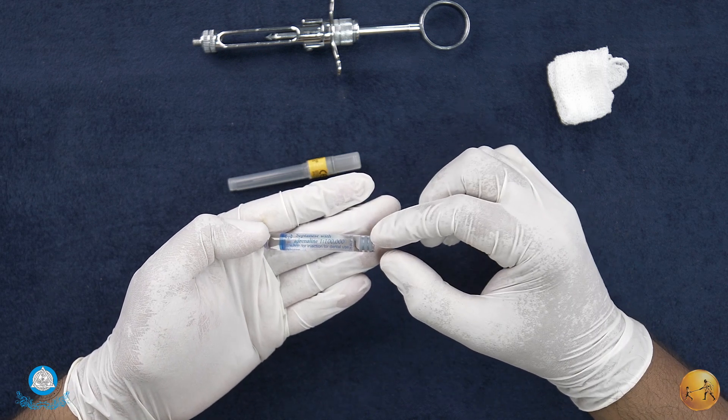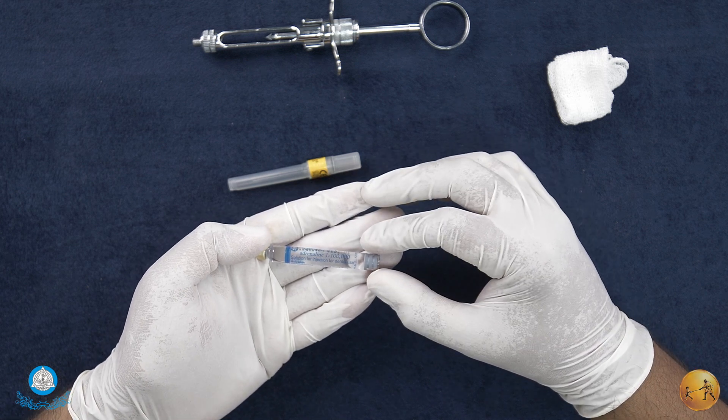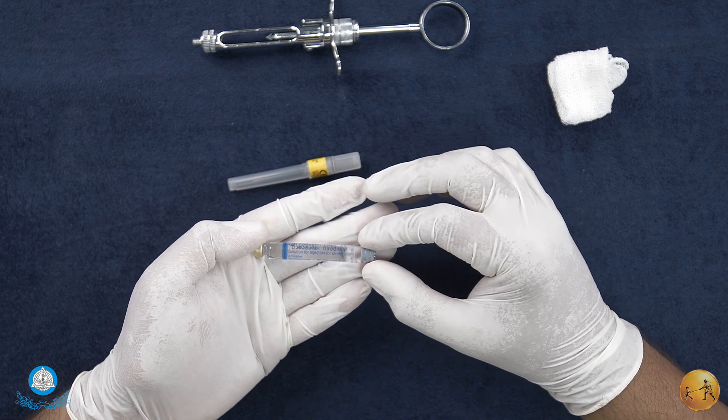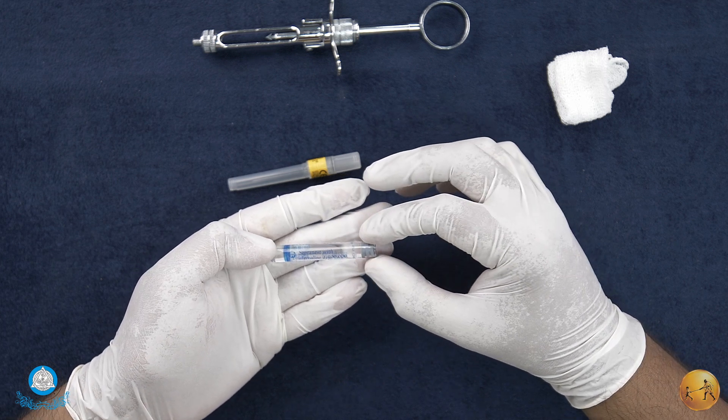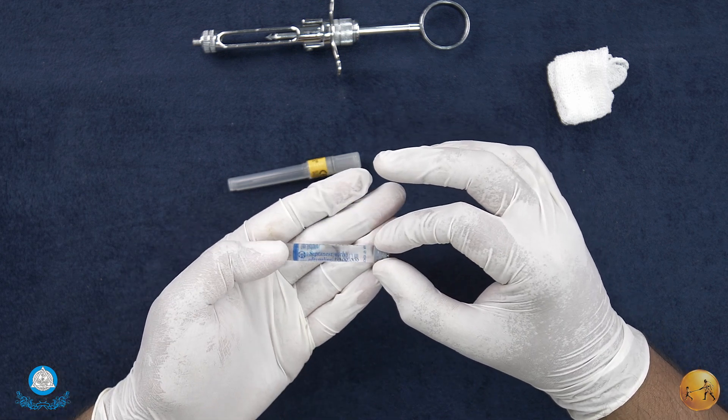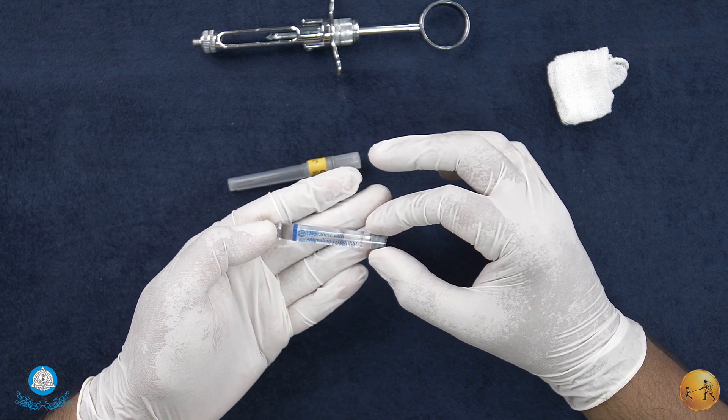But like you see, this one does not. If it develops an air bubble and the cartridge has moved out, that is a clear sign that the cartridge has been frozen at some point. Why do you not use such a cartridge? Because once the stopper comes out, there is no guarantee about the sterilization of the contents.